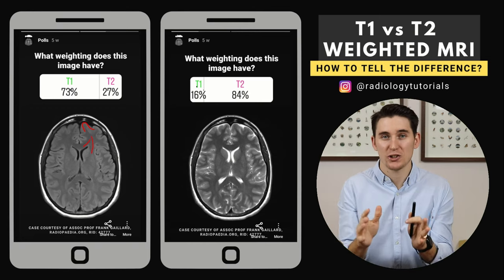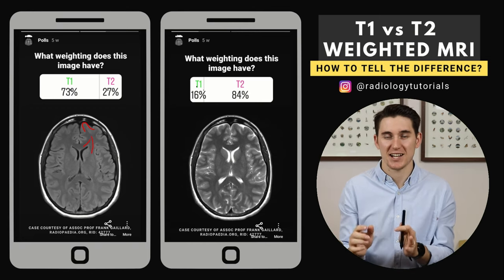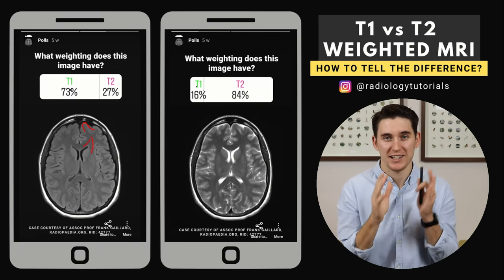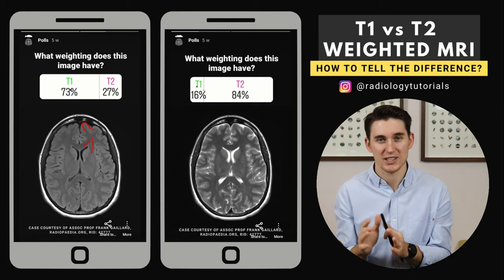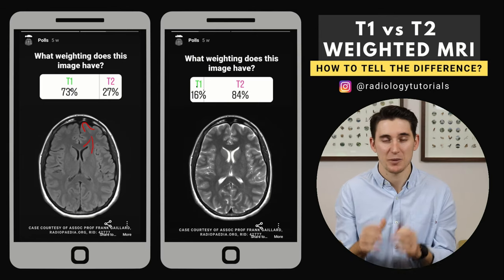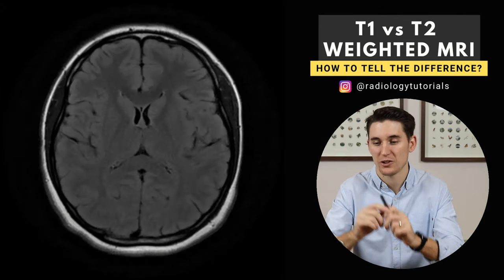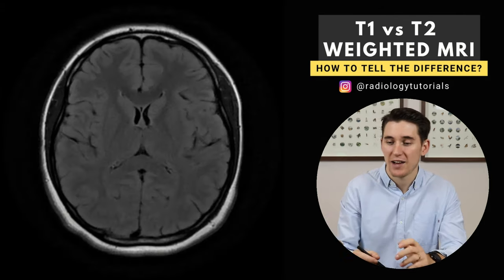I'm going to show you five cases now. I want you to figure out in your mind whether it's T1 or T2 weighted, and I'm going to give you the answers after each image. Let's go over to our first image.